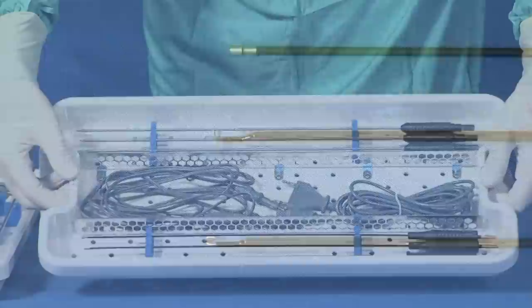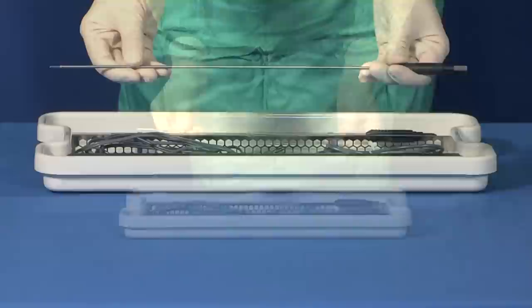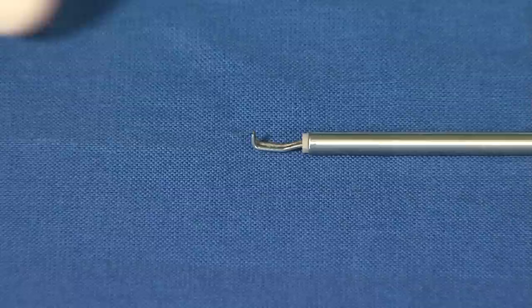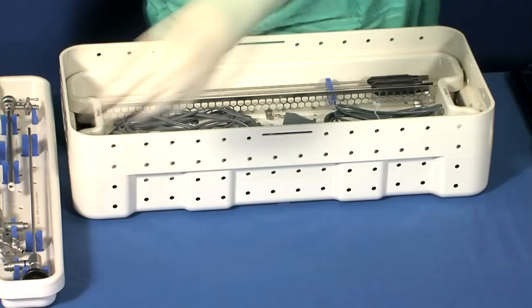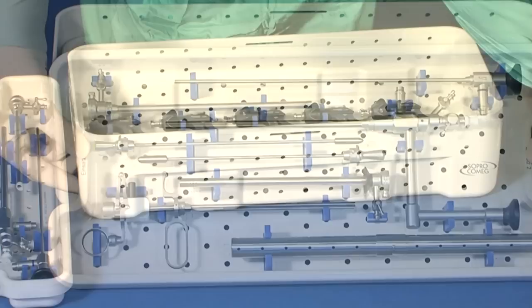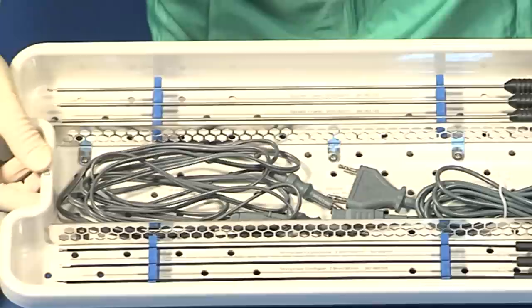The EOS kit can also be operated in saline solution using bipolar electrodes: straight needles, V-hooks, or L-hooks. The monopolar and bipolar electrodes have a working length of 36 cm to enable surgical procedures to be performed on women with deep uteruses. The instruments supplied in the kit enable work to be performed either in monopolar electrosurgery or using only mechanical energy, particularly for myoma enucleation.